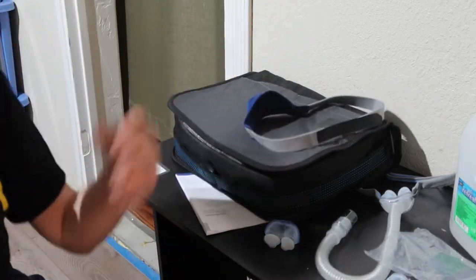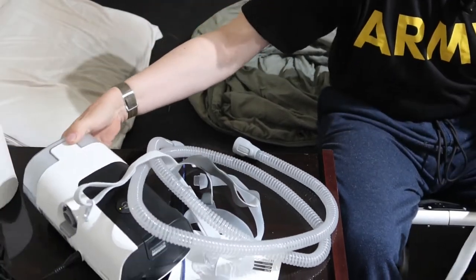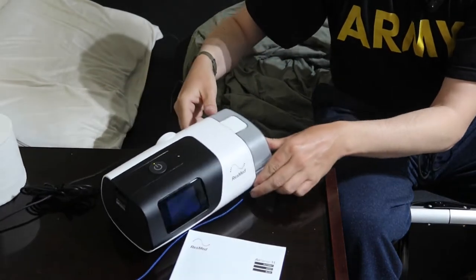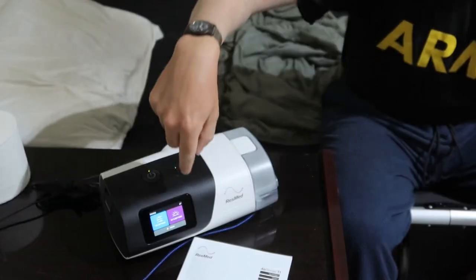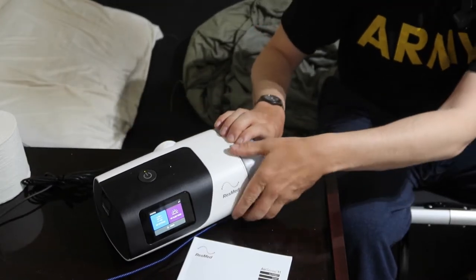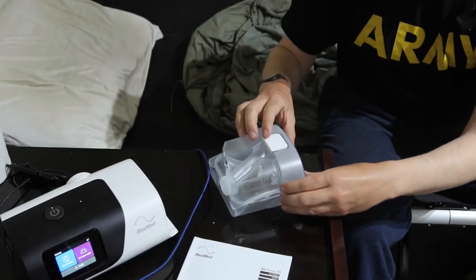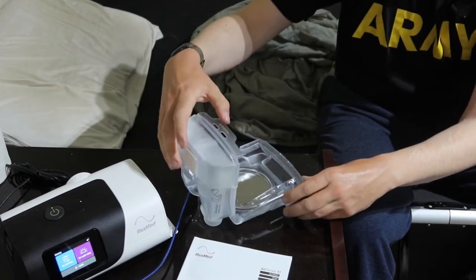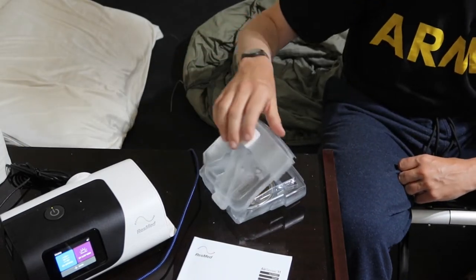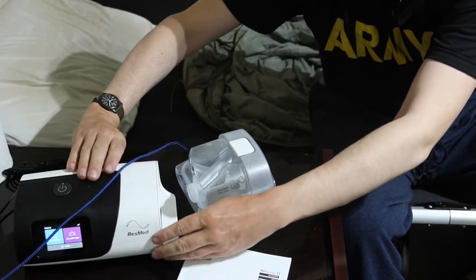Get into your most comfortable nightwear. Here's your machine. You can tap the screen, do a few settings, and you're good to go. You open up the water reservoir by pinching and pulling, then pour distilled water only into it. Button it up, and inside there's a heating element — that metal piece — and that warms the air.